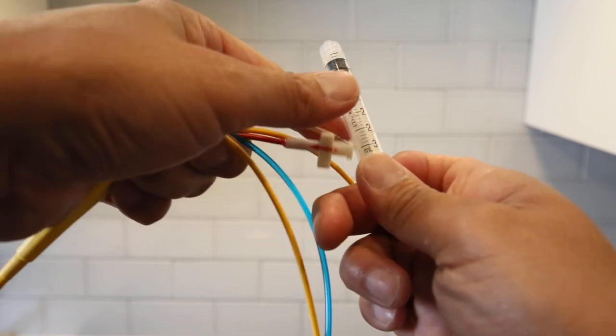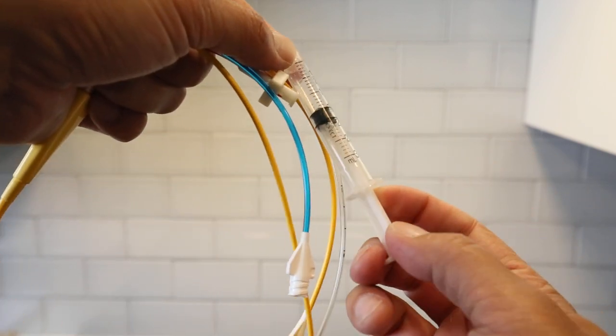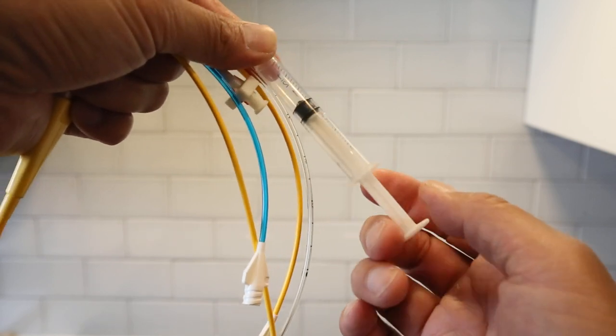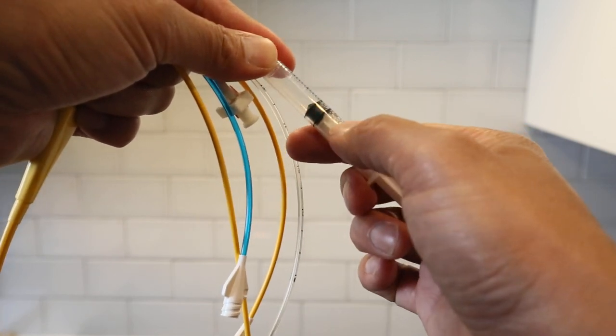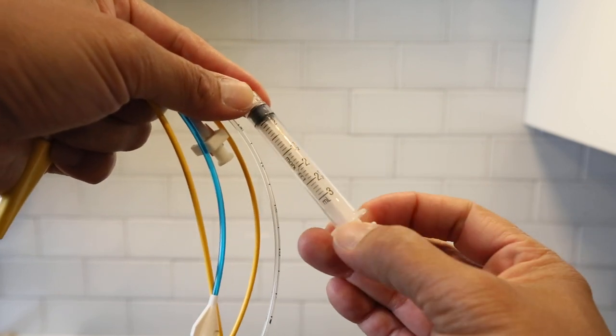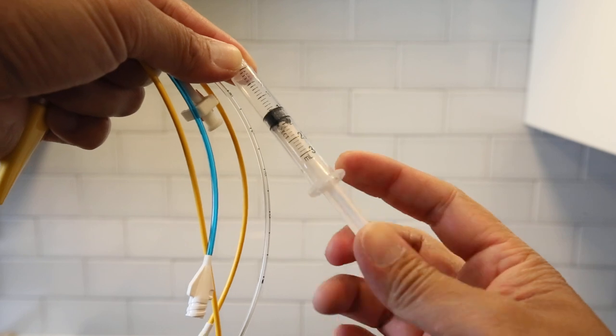I can't go any further than one and a half. See, there's a block right there, so you can't go. You can only go up to one and a half. That's another safety measure.